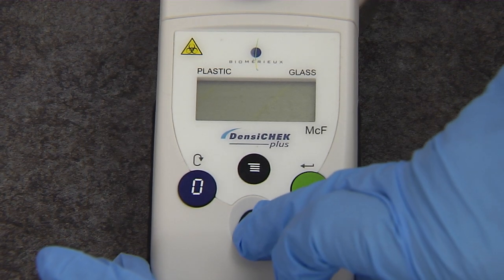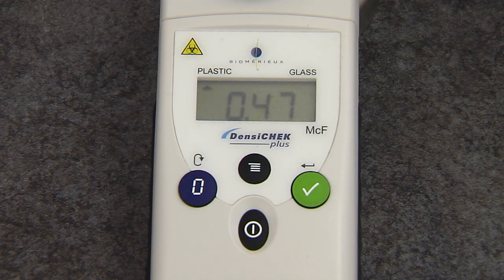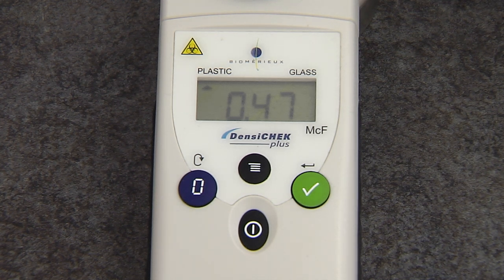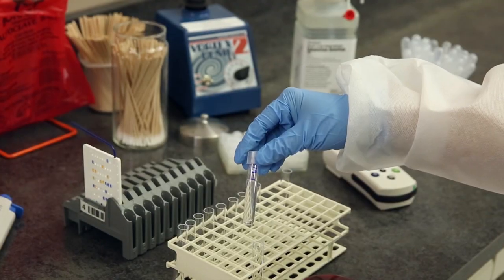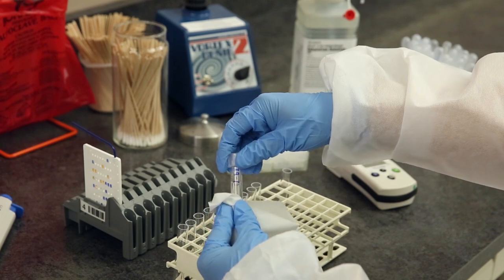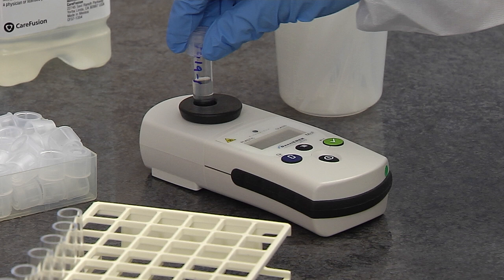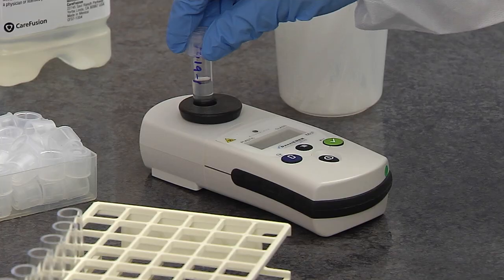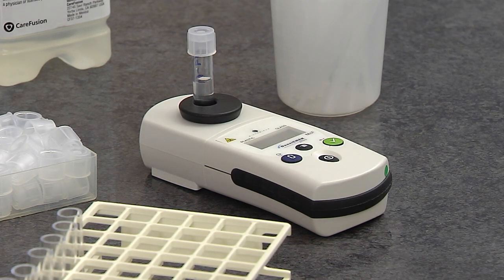Use the DensiCheck Plus to verify an inoculum density equivalent to the McFarland units required by the ID card. Press the power key to turn on the DensiCheck Plus. Note that in order to prolong battery life, the instrument will automatically shut off after one minute of non-use. Verify the tube type is set to plastic. Clean the outside of the tube with lint-free tissue or lens paper. Insert the tube containing the organism suspension into the DensiCheck Plus, ensuring that it is seated at the bottom. Slowly rotate the tube one complete revolution, 360 degrees.